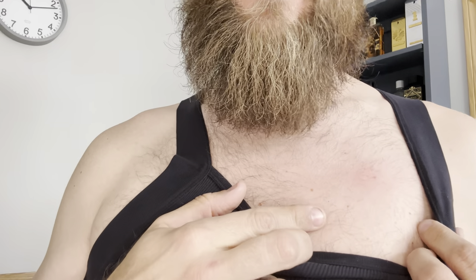With that said, I'm going to wipe this off, trim this area, and then come right back to apply the new sensor. So as you can see, I opened the package — this is what it looks like. It comes right off — super easy, completely gone. Now I'll be right back in just a second. I'm going to trim this side before I apply the new sensor.